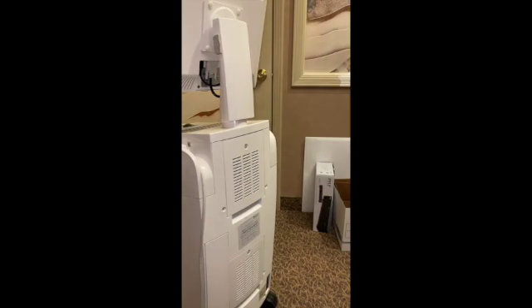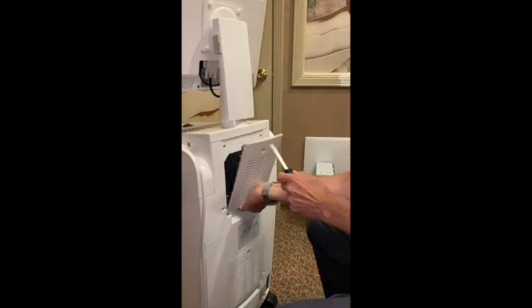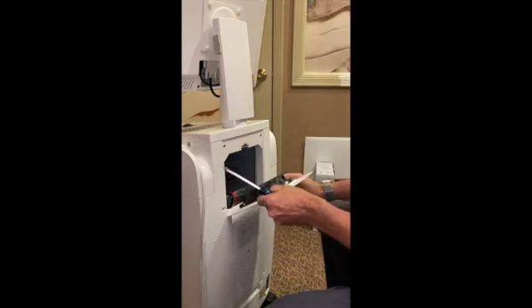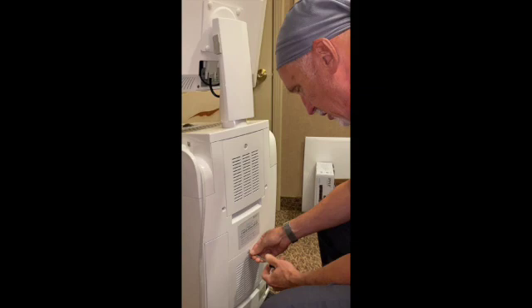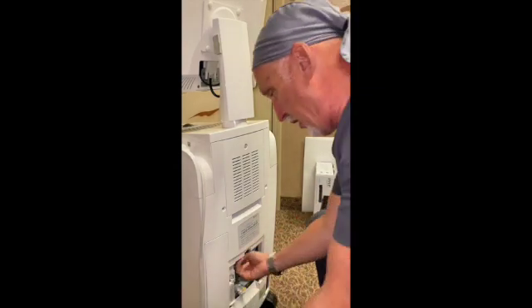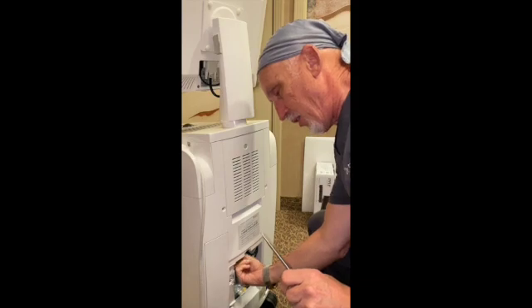We're going to undo the first panel — that's connected to a fan. We go right here and undo this. Down here it's connected to the chassis, so I'm just going to put that right back for a second and take this other panel off first. Flip that out. If you reach up in here you'll feel them — just unplug this with your finger.